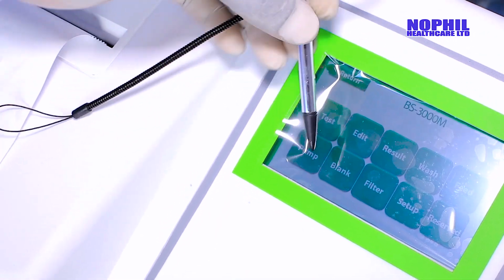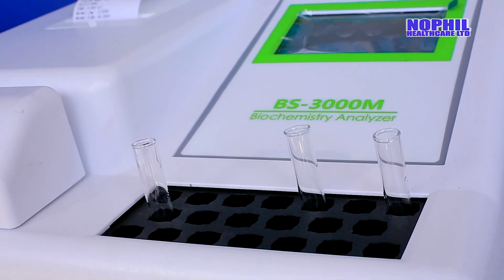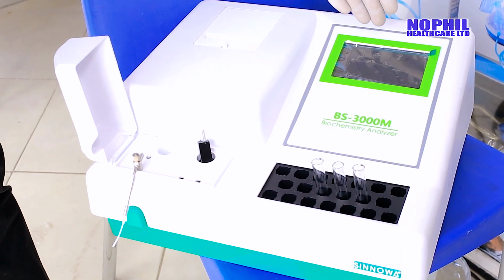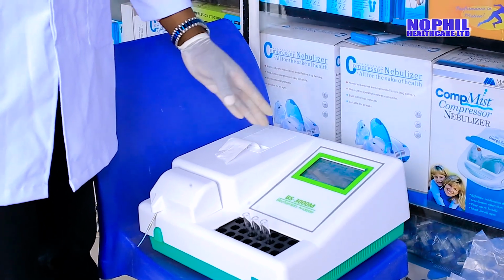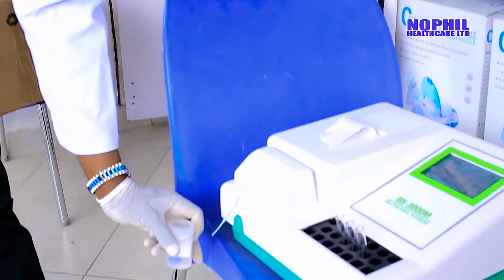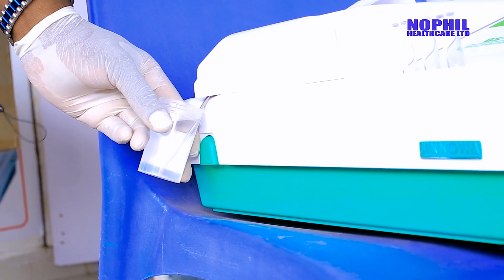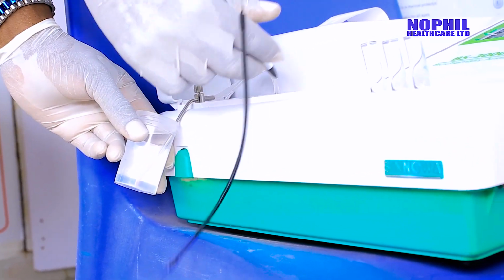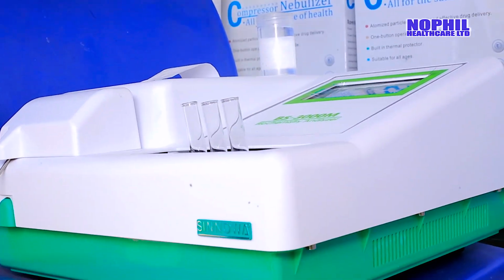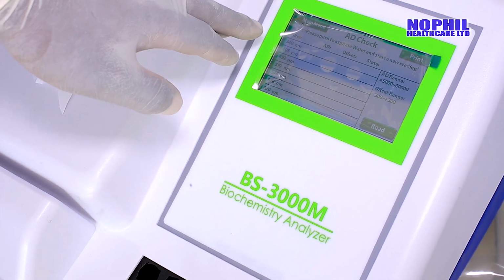Another part that we would like to see is the blank test. It's very key because it helps the user to know whether the machine is in accurate condition before it starts to perform the various functions. We want to do an illustration on how the blank test is done. You just place the distilled water at the probe, and then you click the push button once. The machine will just pick the water and it passes through the flow cell. Then once you've done that, you just click the function read on the display. The machine will read and check itself using the various wavelengths.